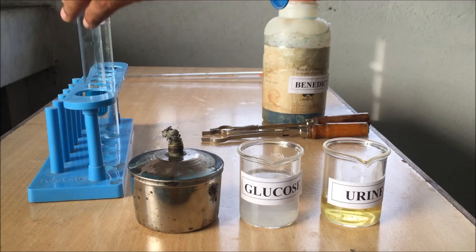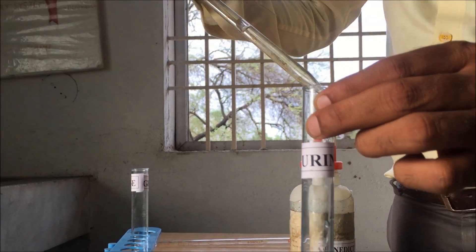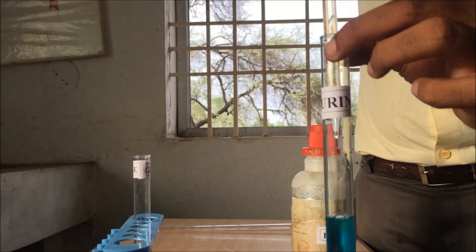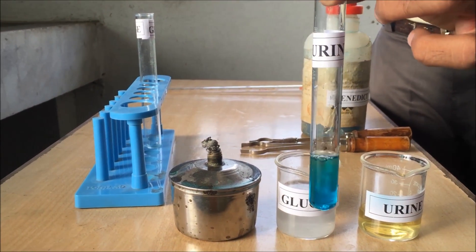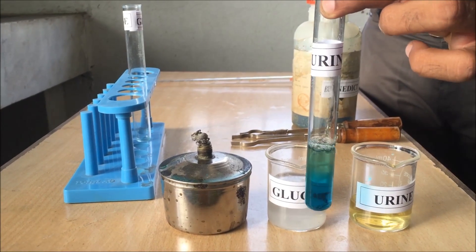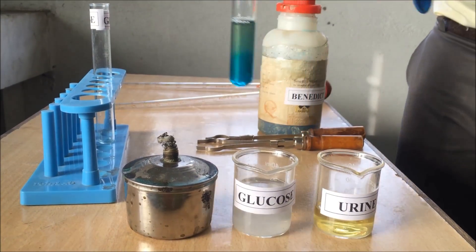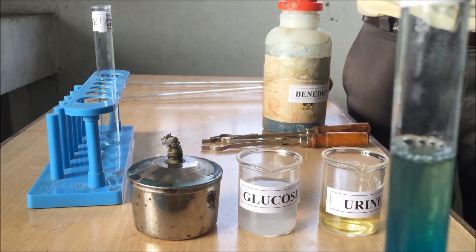While transferring the urine sample to the Benedict reagent, one thing should be kept in mind: the urine sample should be poured very slowly, or it should be poured along the wall of the test tube. After transferring the sample, you can observe two slightly different layers in the test tube, so we will shake it slightly to mix them properly.